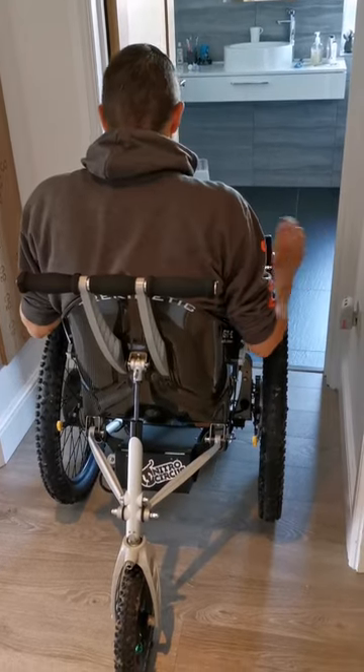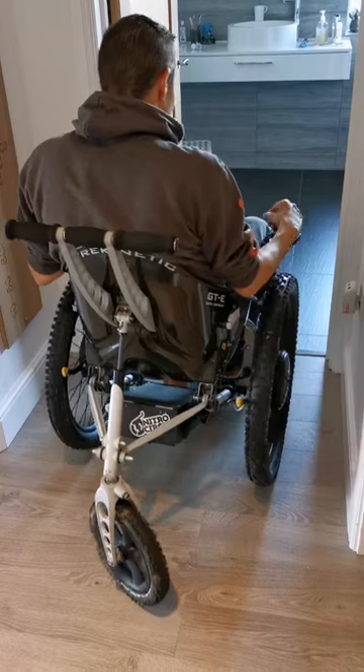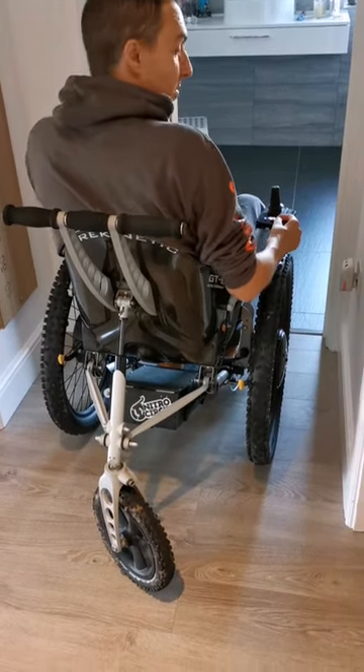Got down to the end here — not going to be enough space for me to manoeuvre. Now for a bit of an obstacle, I'm going to turn the chair down a little bit so I'm not going so fast.